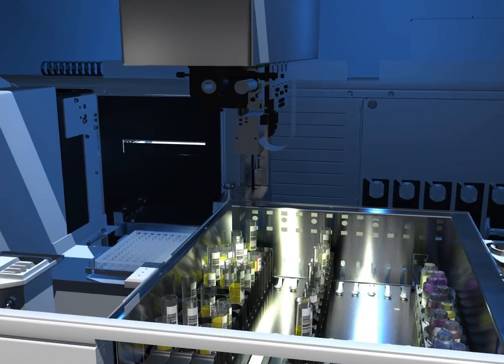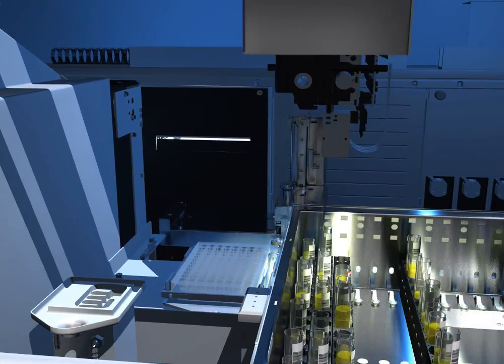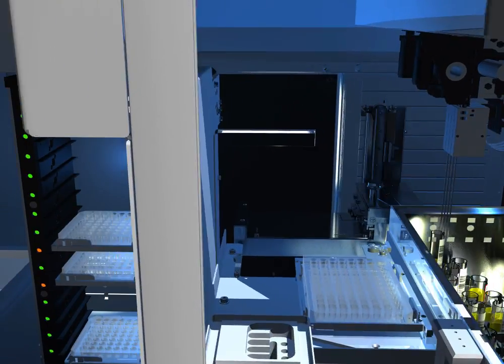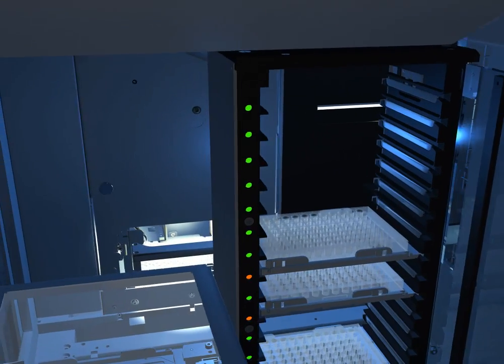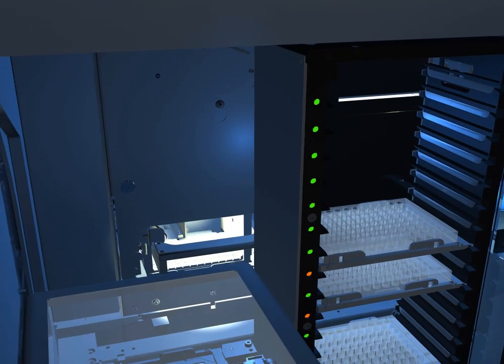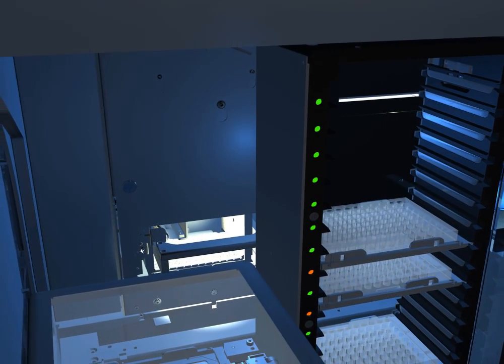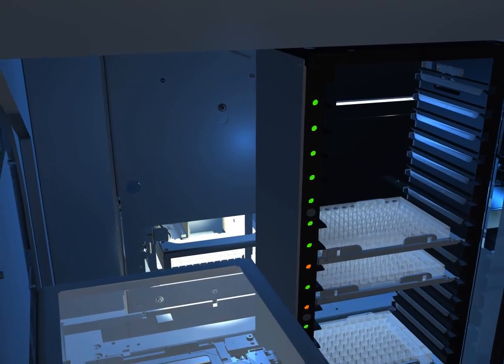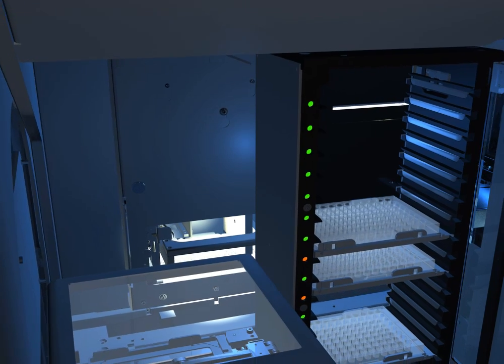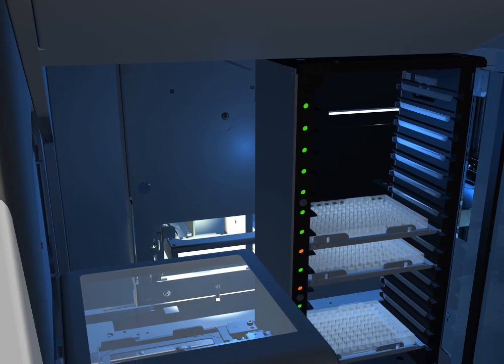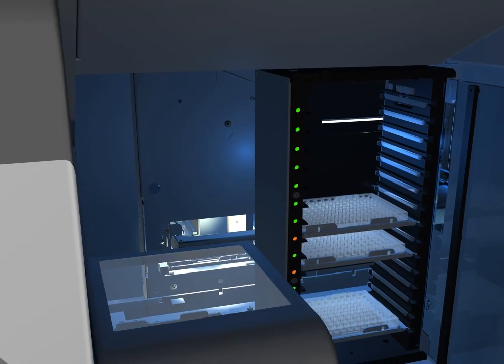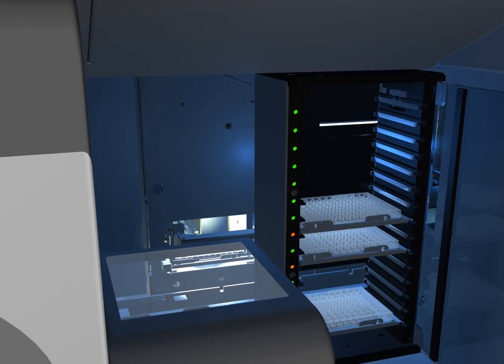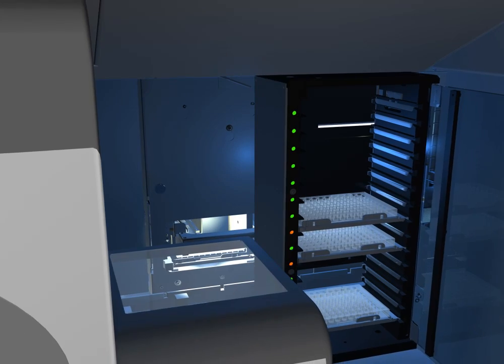To the left of the microplate loading tower is the automated plate washer used for capture assays. NEO's washer is one syringe pump and features automated aspirate and dispense verification, which ensure that each wash step is performed correctly.